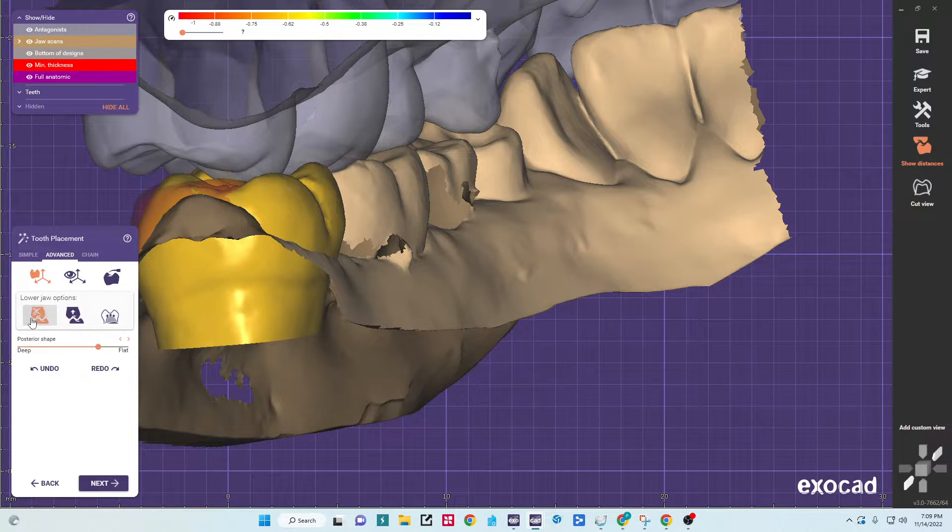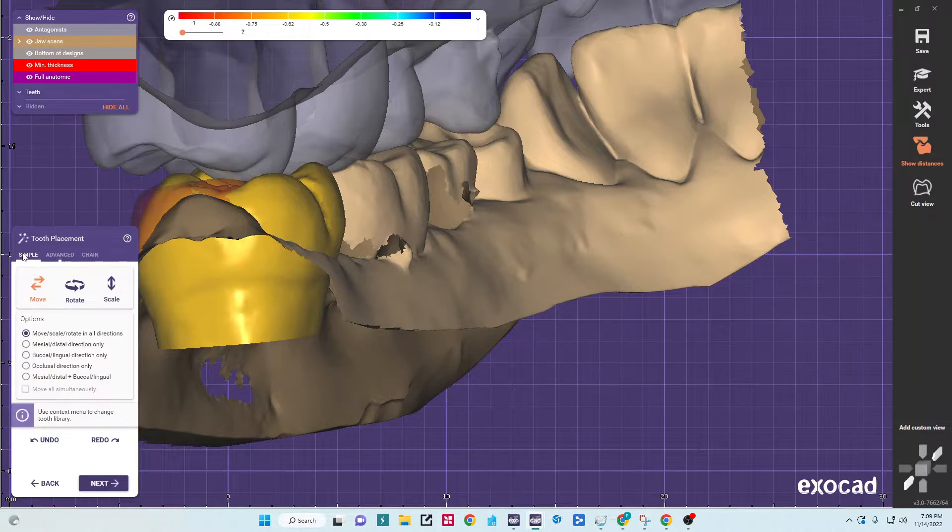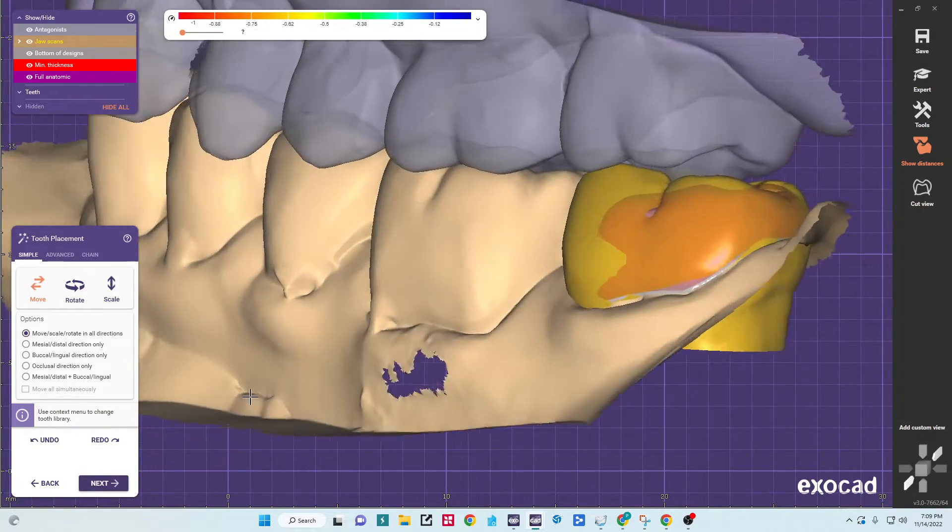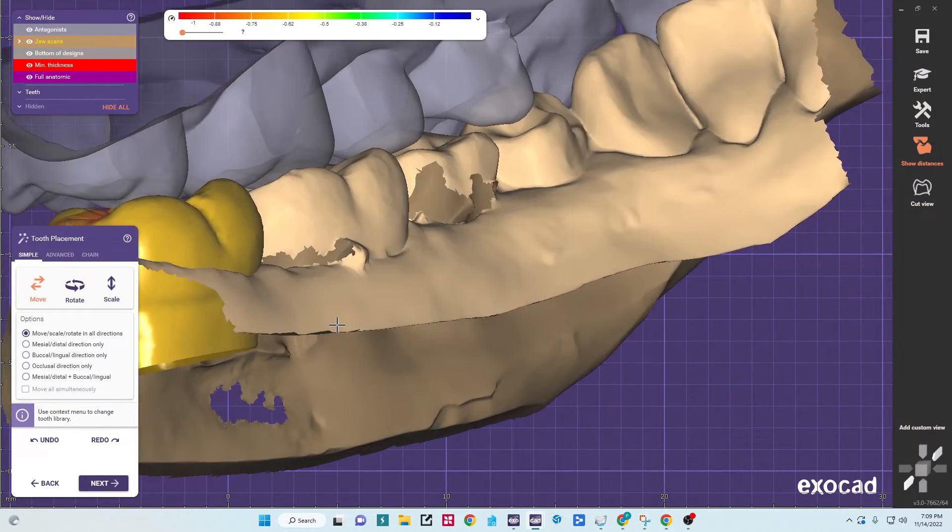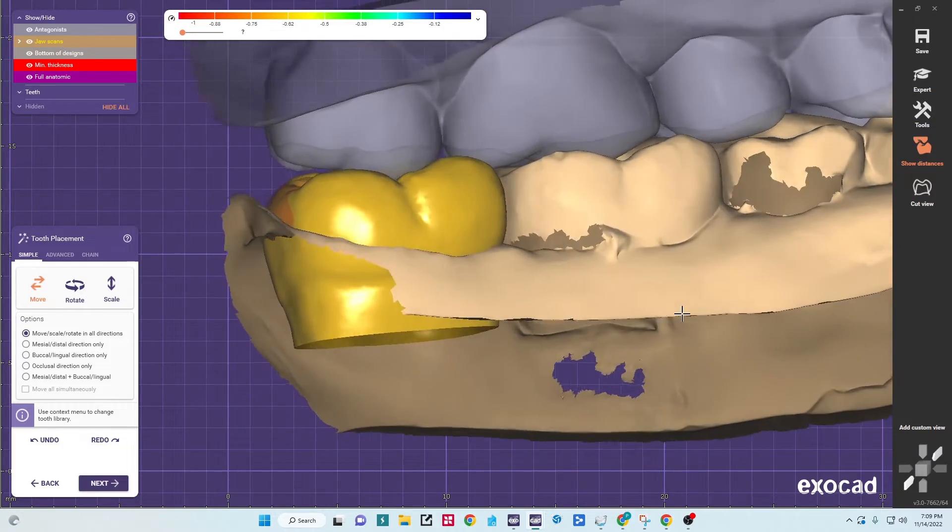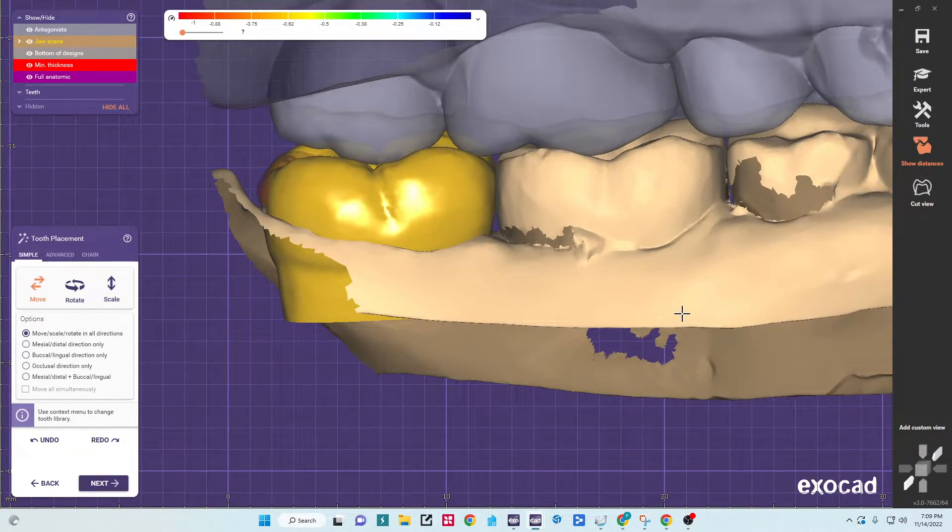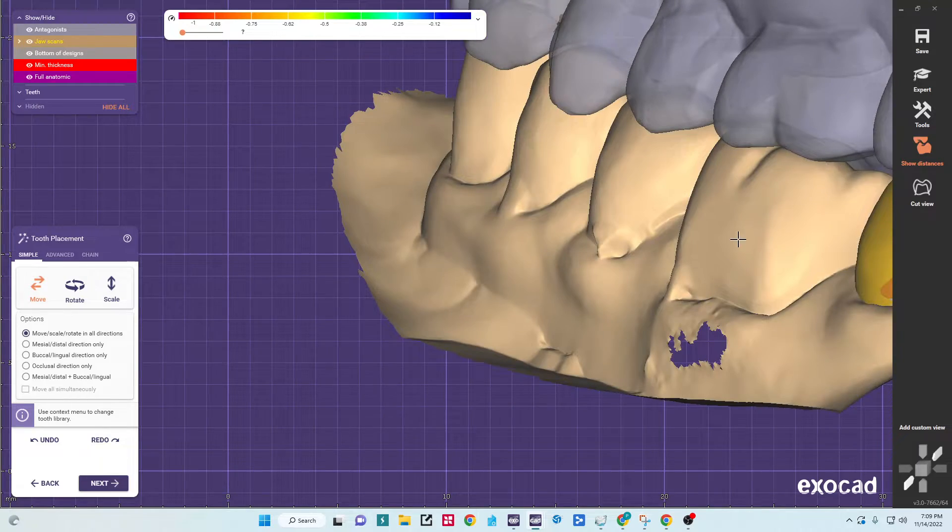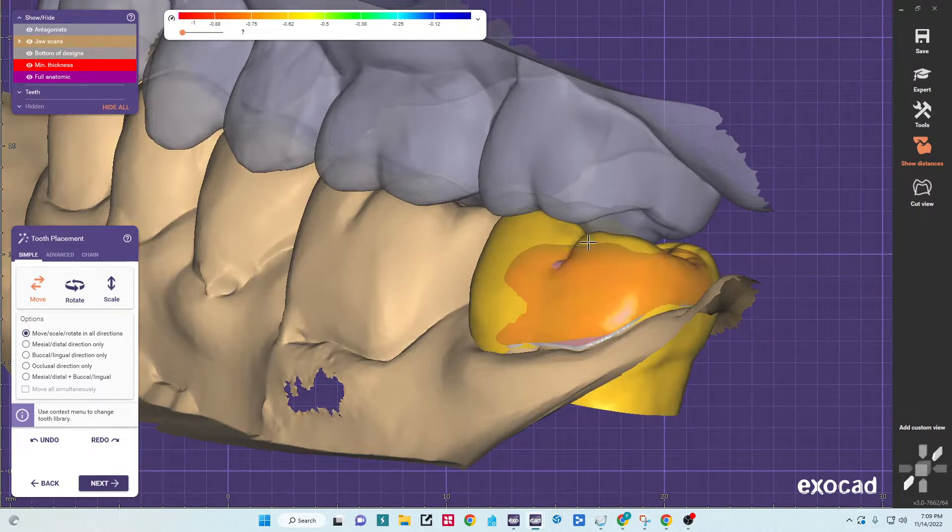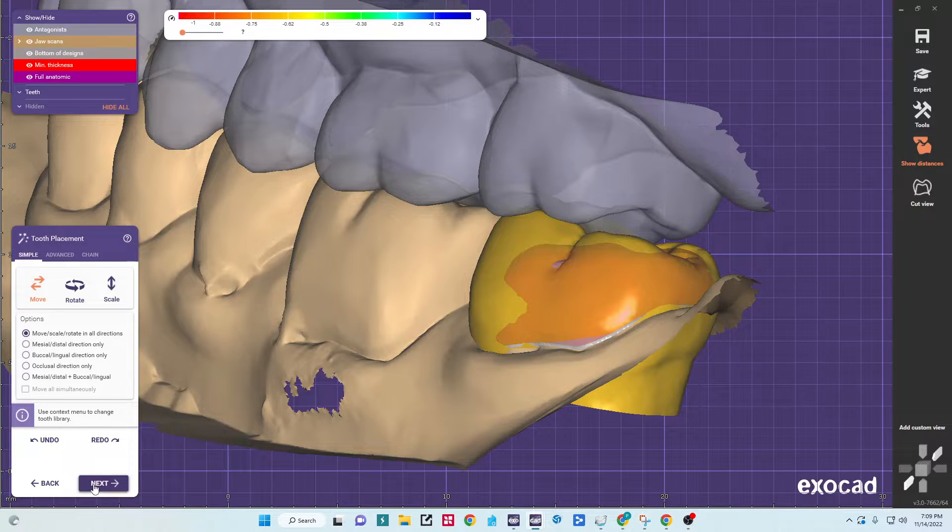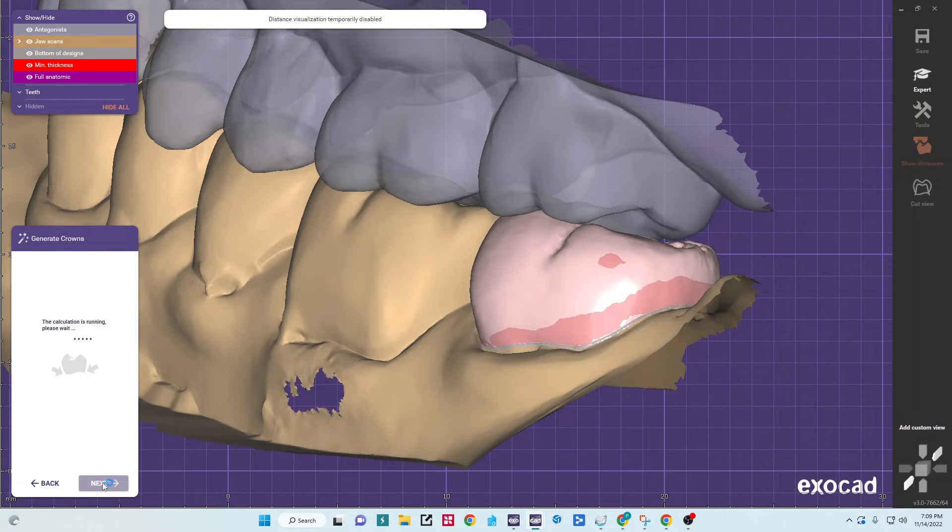The other option is to do it through cutting, but that leaves rough spots. And then of course there's these simple movements that you can do as well. Aside from that, I think our design looks pretty good. We could rotate it just a little to the mesial if we wanted. The red area here is where we're below minimum thickness, but that'll take care of itself here in the next one.